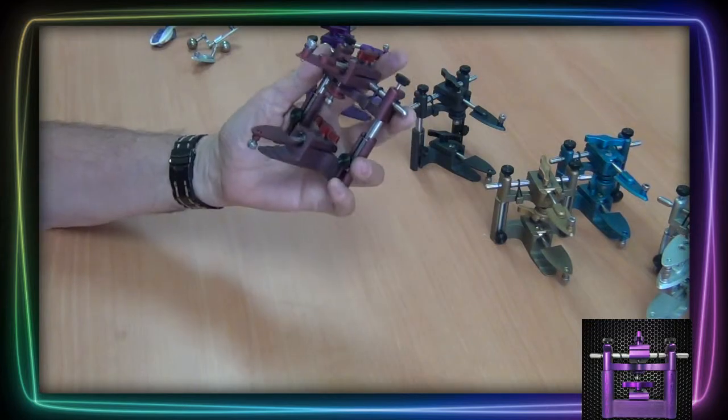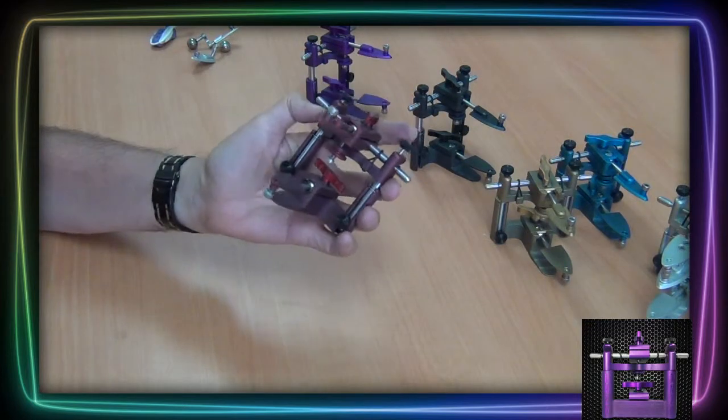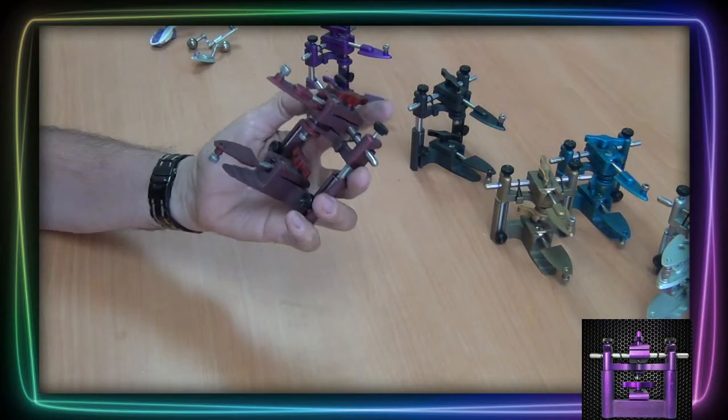The versatility of this small articulator makes a big difference in how quickly and effectively it gets the job done.